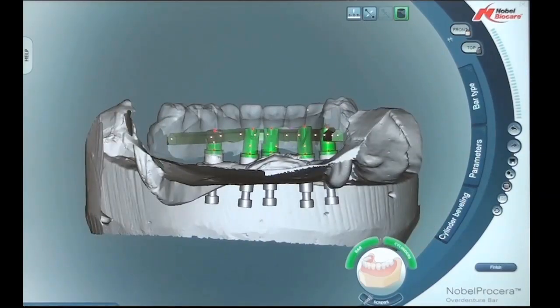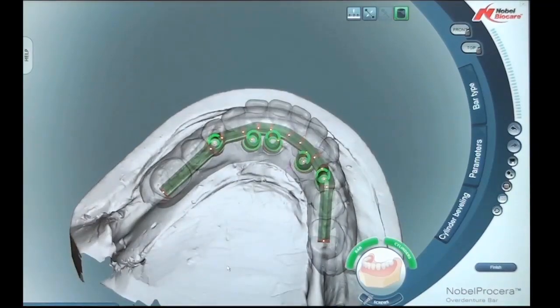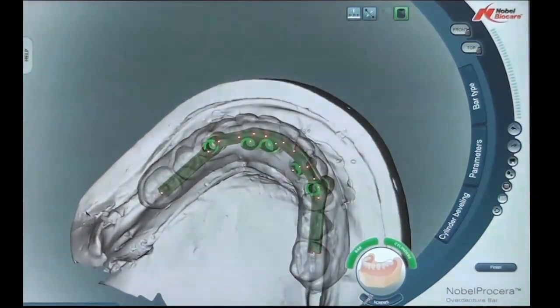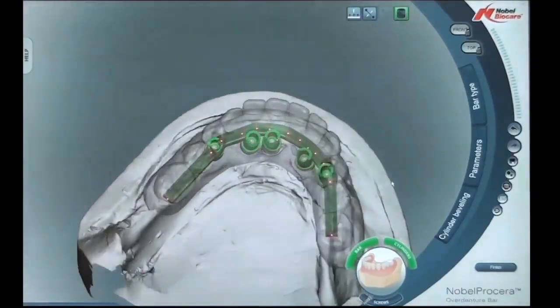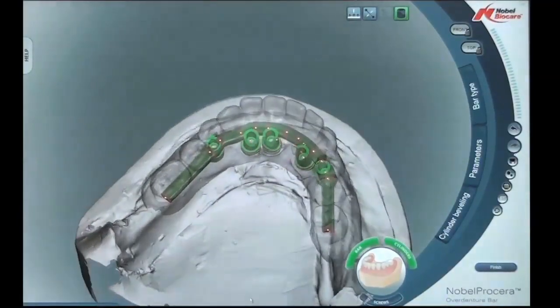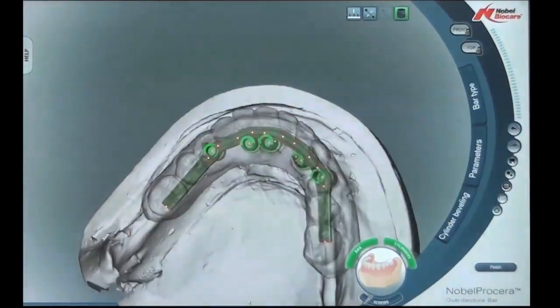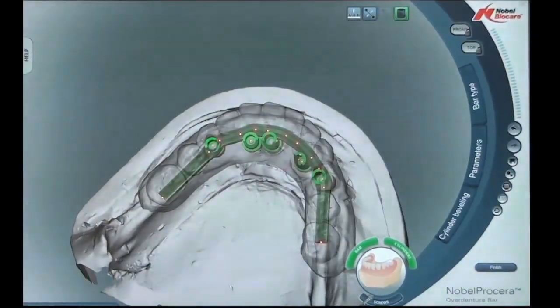We can move the model and look at it from different angles to help see that bevel. Rotating the model downward gives more of an occlusal view to see the beveled segment. By not having the cylinders fully 360-degree contoured, we can bevel them down at the lingual to create maximum tongue space.